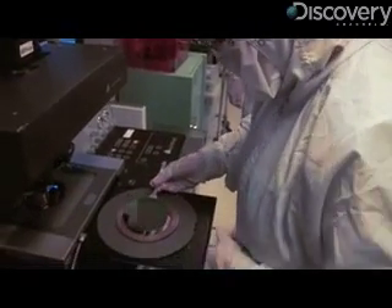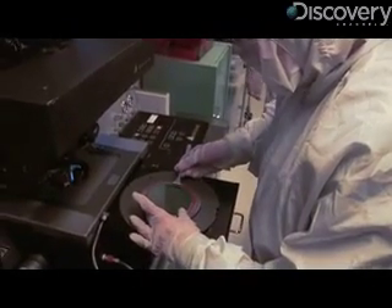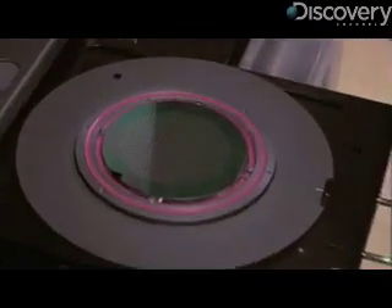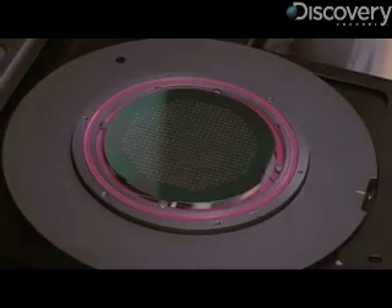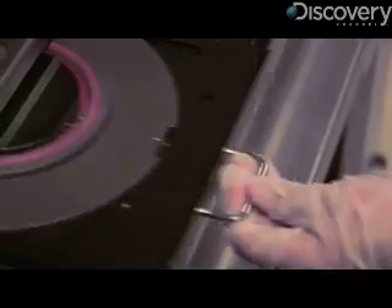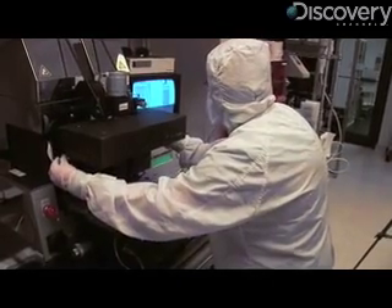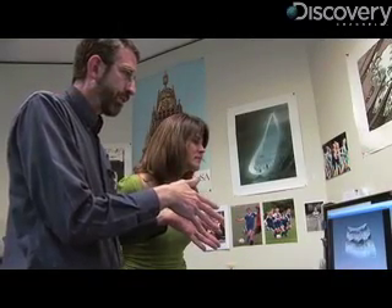The tip contains a microelectrical mechanical mirror, or MEMS mirror for short. MEMS may sound a bit confusing, but they are basically just microscopic moving parts built on computer chips. With Bernstein's work, the MEMS component is a mirror. The MEMS mirror works with a laser beam inside the endoscope to help scan and illuminate the tissue. Together, they build a 3D image line, which helps reveal cancerous tissue beneath the surface.